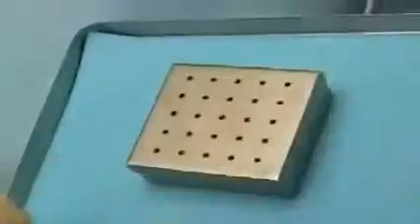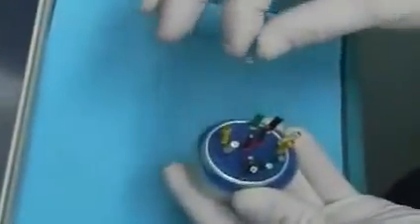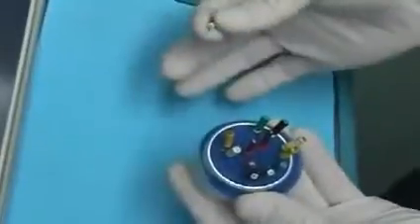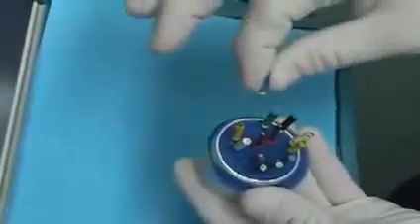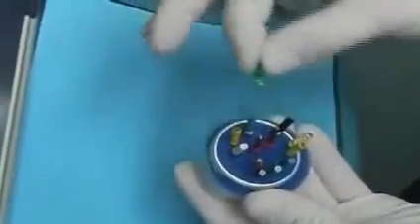However, in far too many cases, root canal work is performed with unsterile instruments. Instruments are placed openly in simple foam rubber racks, as seen in the image here.